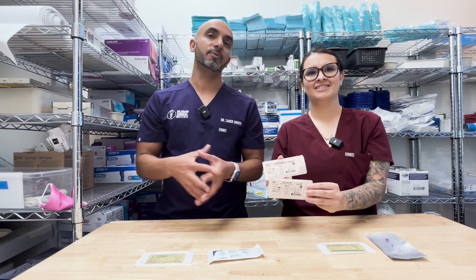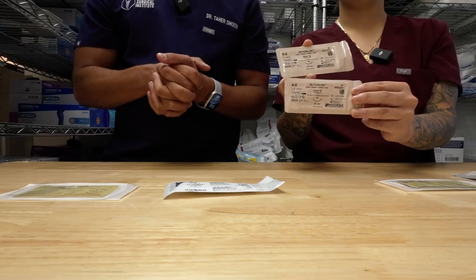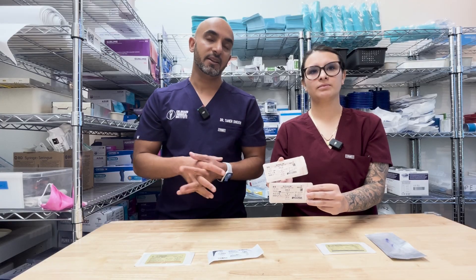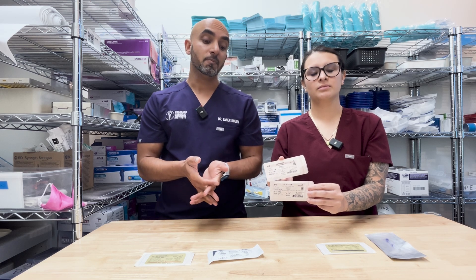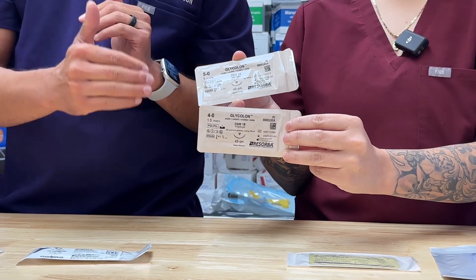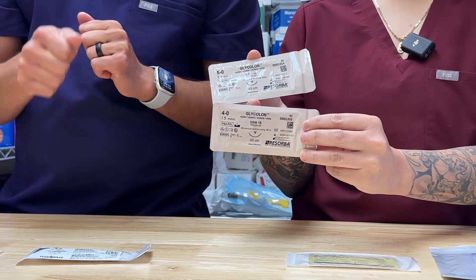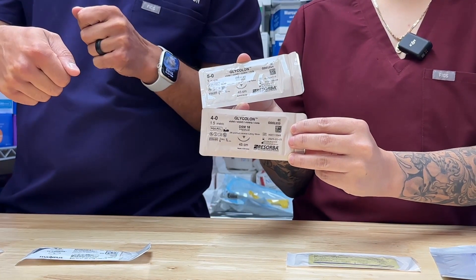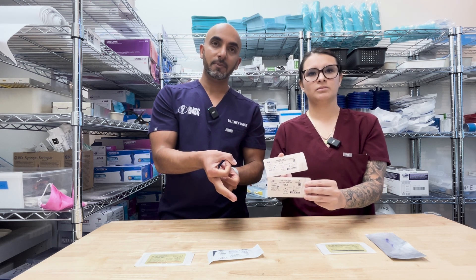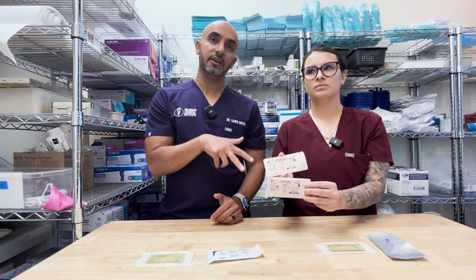The 4-0 is a little thicker and easier to handle. I'll usually suture the vast majority of my cases with glycolon — even if I'm doing a single site or really anything. Glycolon can be used very versatilely in a lot of places and it's not that expensive anymore. It's a long-lasting suture, going to stick around for four to six weeks and ties down nicely. But what I find with glycolon is that if you do your knot backwards by accident, you're going to see a little loop forming and it's going to unwind more quickly. So you have to be very intentional with how you tie your glycolon down.